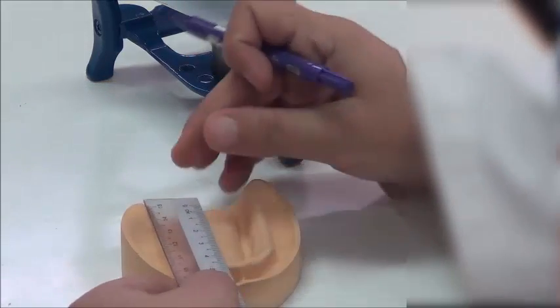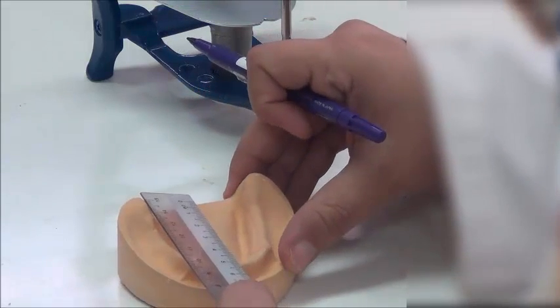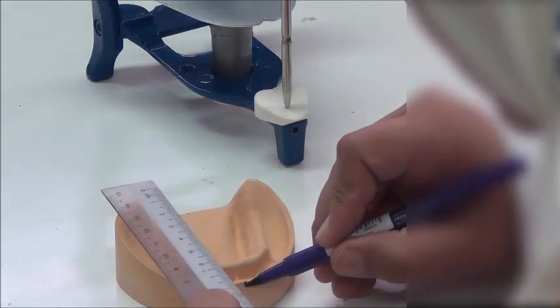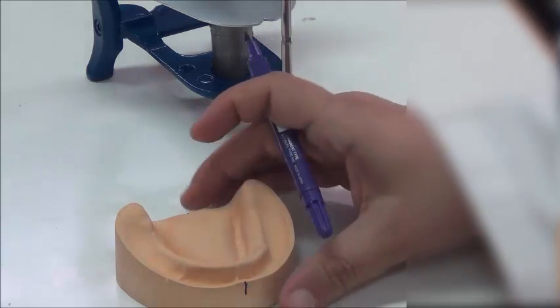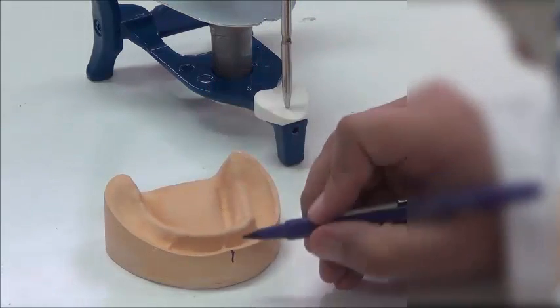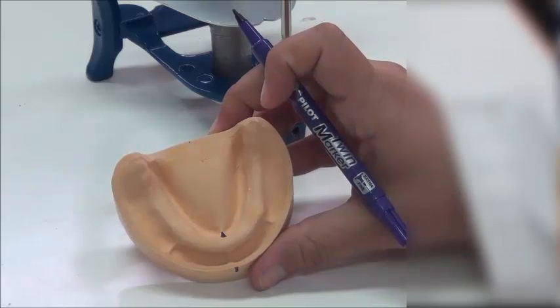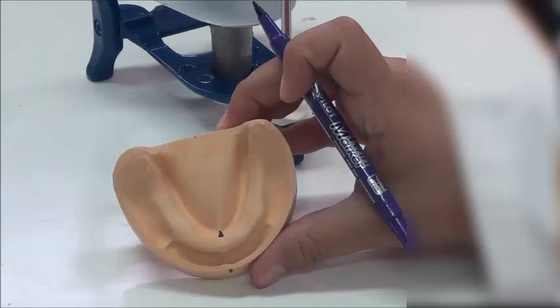So I'm going to put the ruler over them, looking vertically down over them, and then come down with the pen over the mid of the cast, and this is my midline, anterior midline point on the cast. Here you could notice that for the patient case that we have, or the cast that we have, yes, the labial frenum is a bit away from the midline of the cast. Okay? So now we know the anterior point.